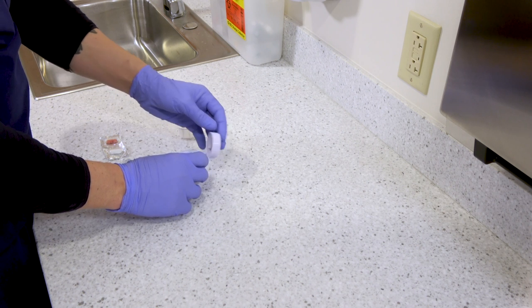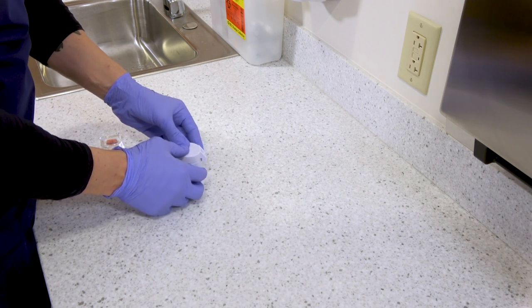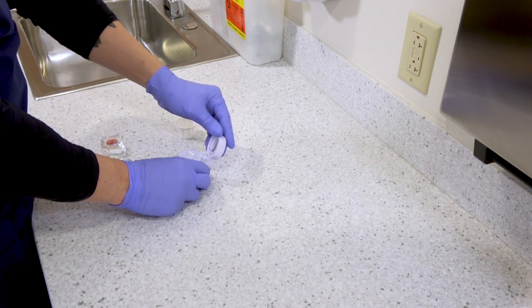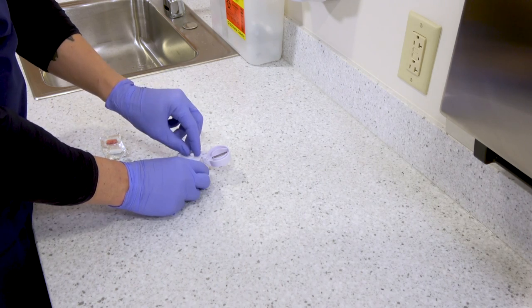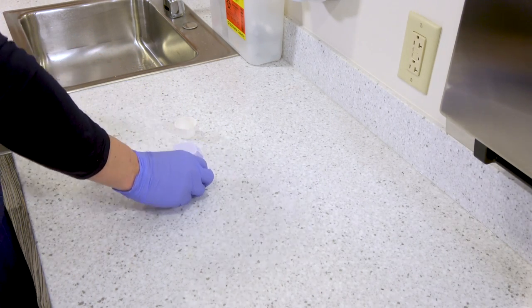Once you have it lined up, close the cutter firmly and you'll feel that pill snap. Once you've cut it, open the cutter and drop half of that tab into a medicine cup. Dispose of the other half appropriately based on your facility's policy. Make sure you close the cutter so no one cuts themselves.